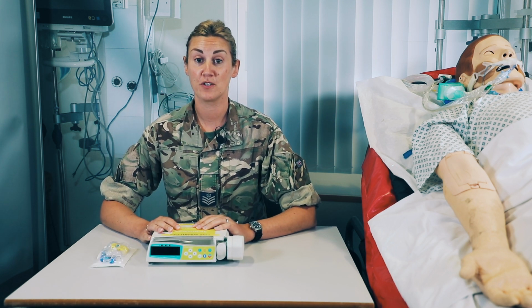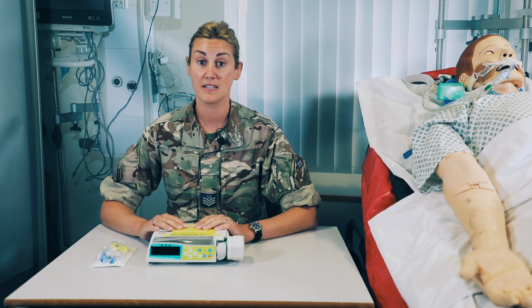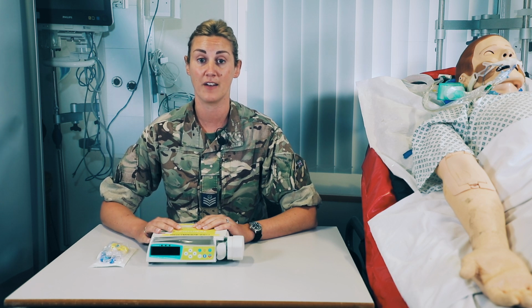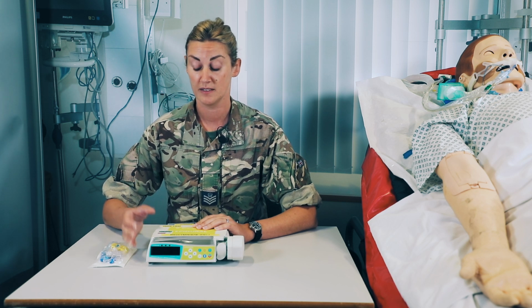So, practical use of the epidural. Current SOPs and general practice is that if the patient requires an epidural for pain relief in flight, then we should also always have a PCA connected just in case we have any failures in the epidural. It just enables the patient to give themselves some personal analgesia as required.